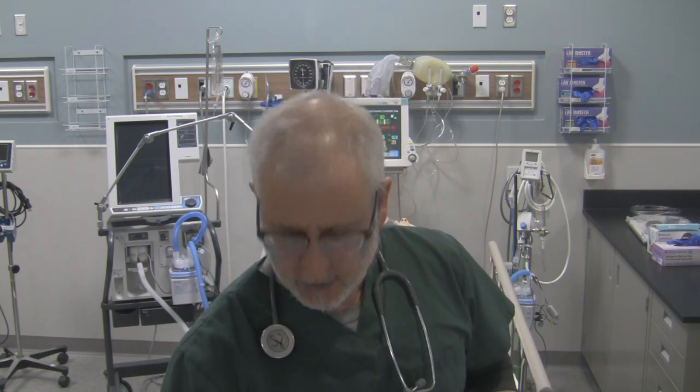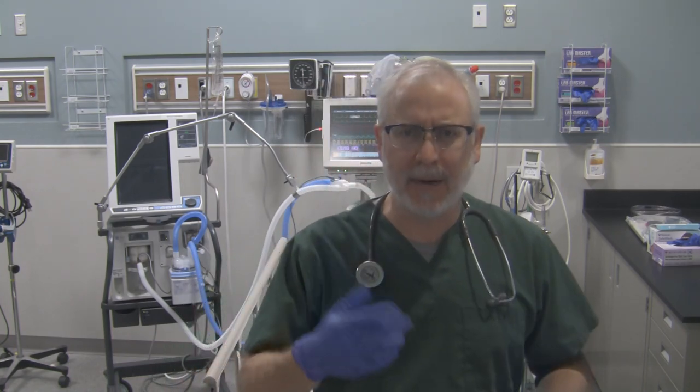Hi, it's George here. What I want to do in this video is just show you some different types of endotracheal tubes. You might have heard me mention over the course of some videos referring to an evac tube or something like that. I'd like to show you some different types of endotracheal tubes that you may encounter in your professional career as a physician, respiratory therapist, nurse, EMT, paramedic, etc.